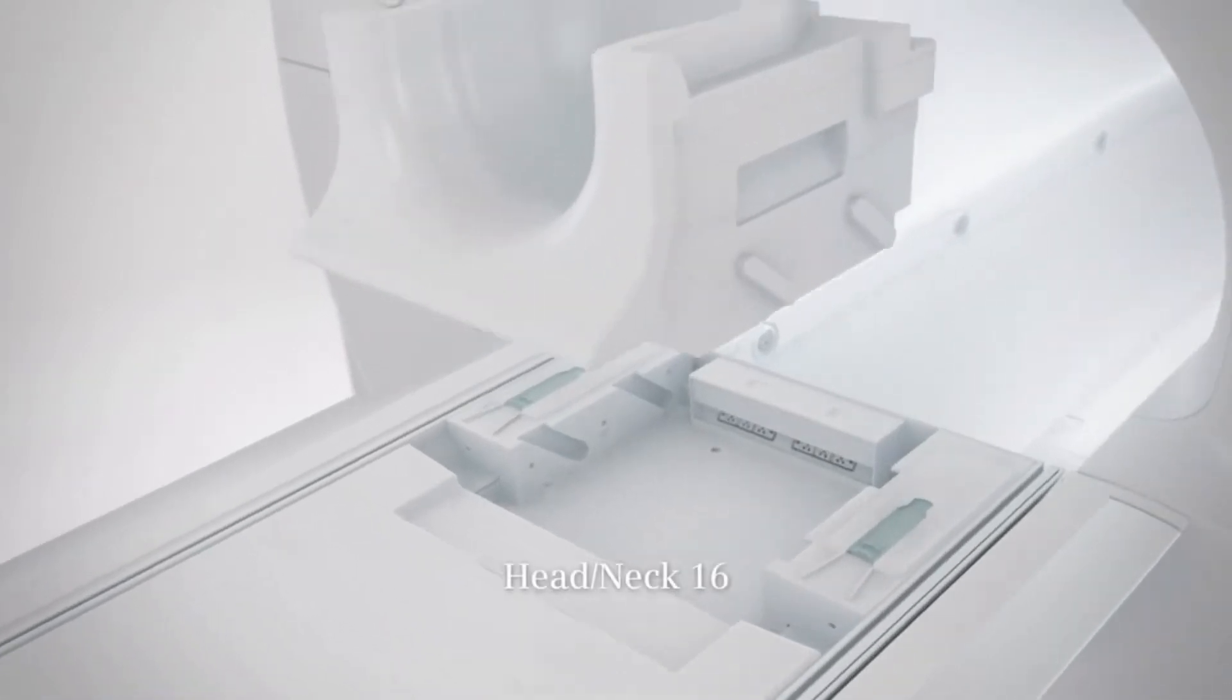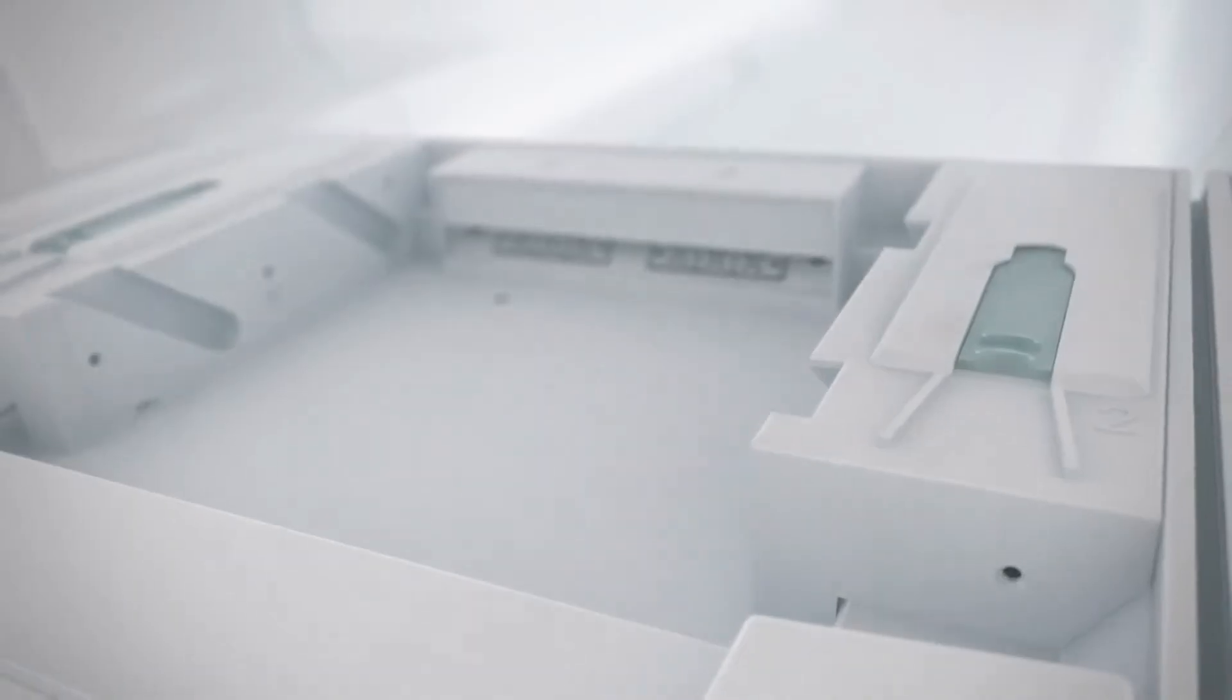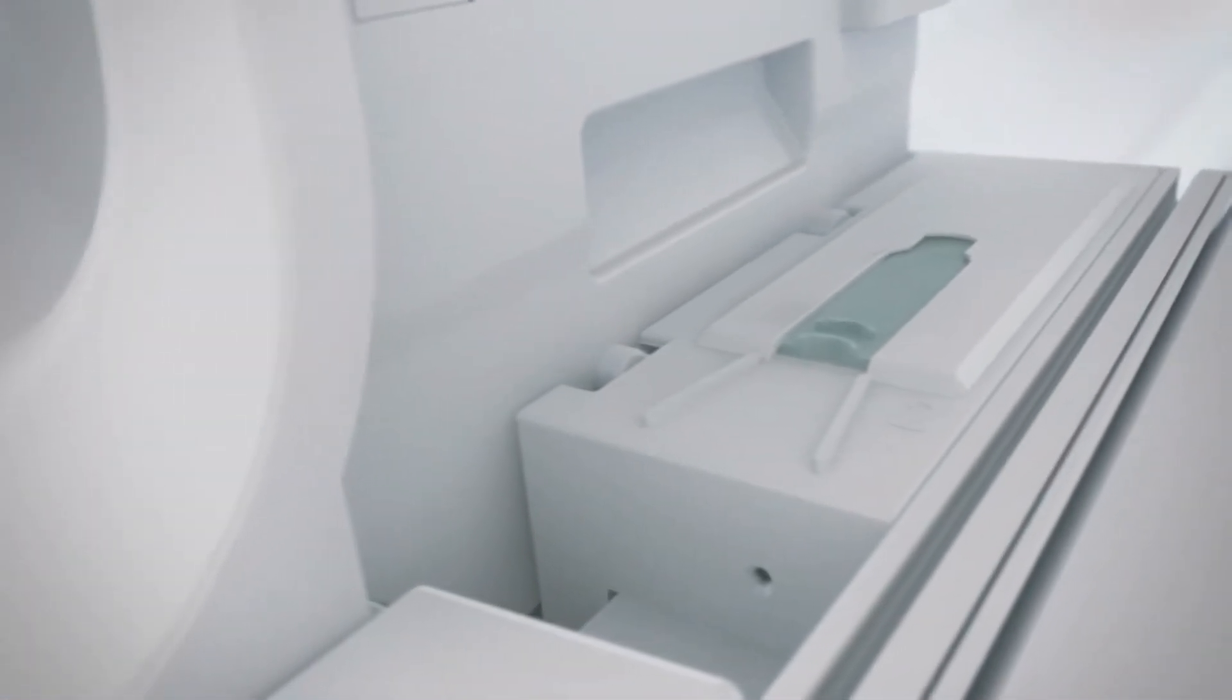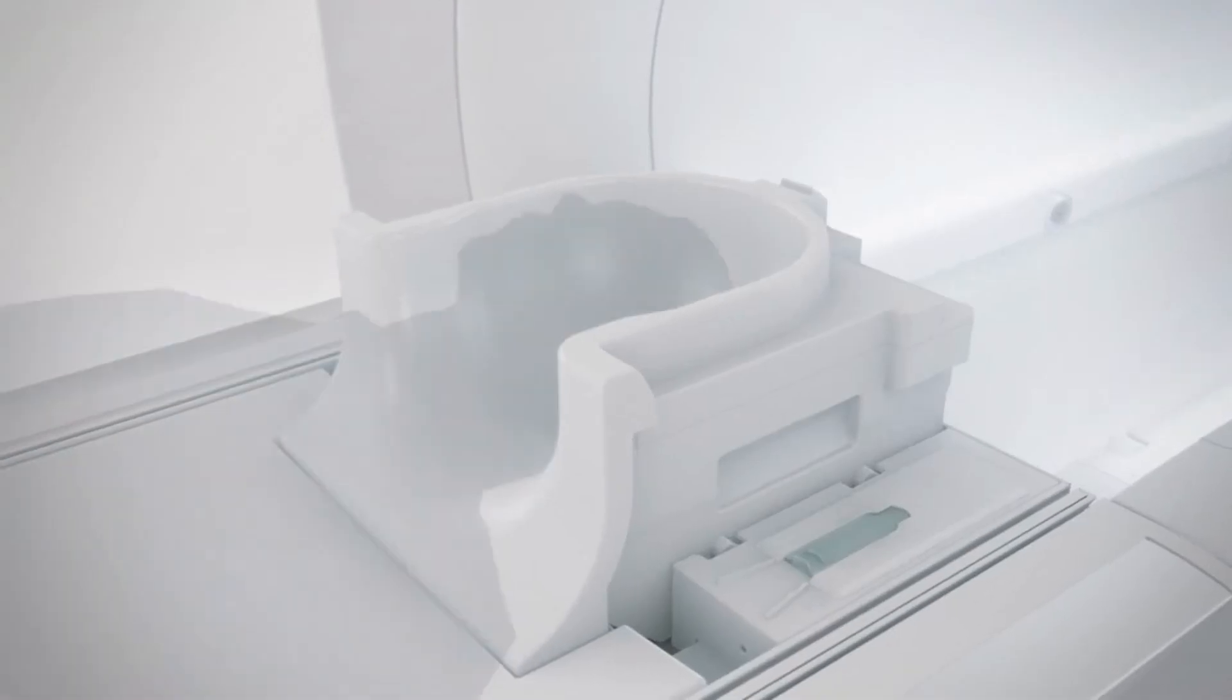Experience the brand new set of TIM 4G coils. Our 16 channel head neck coil is the newest addition to this family.